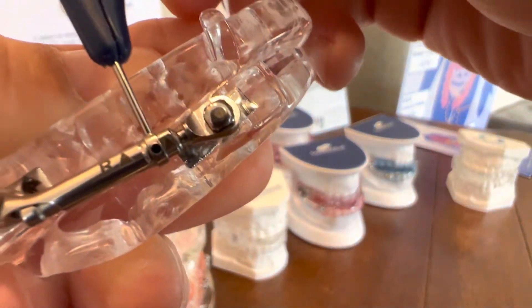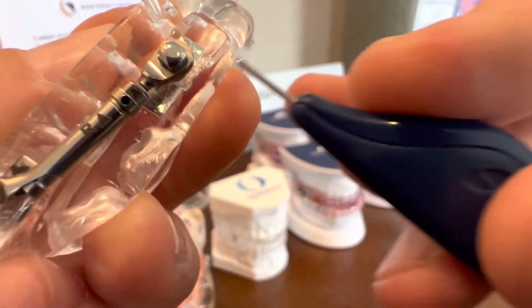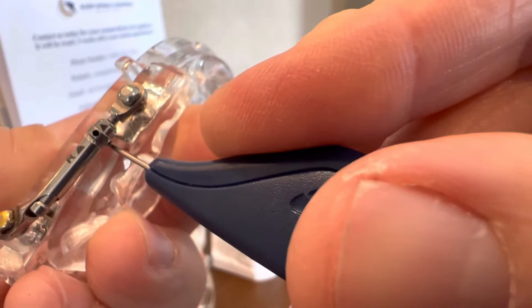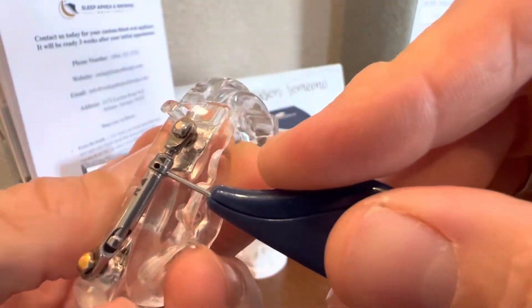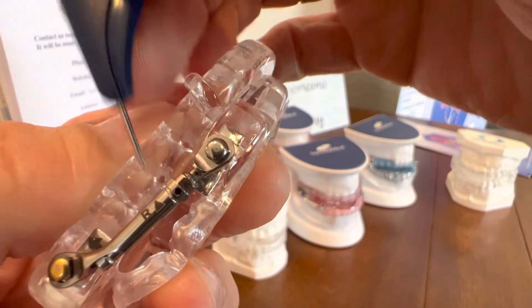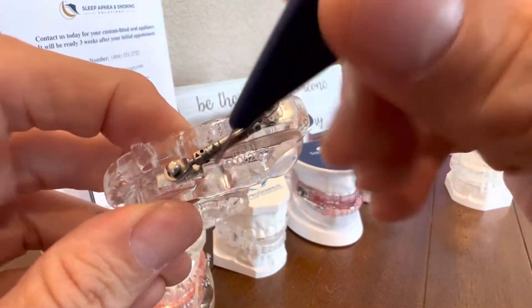So it's going to go from bottom to top. That was one turn, and I'm going to come back in here. I'm going to make sure I get it inside that little hole right there, and spin it again. That's two turns. Whatever you do on one side, you're going to do on the other side the same thing.